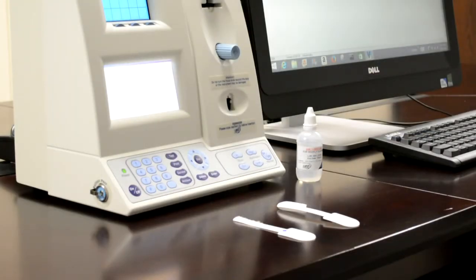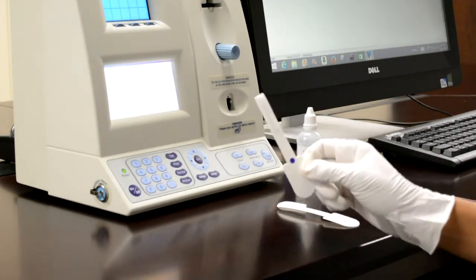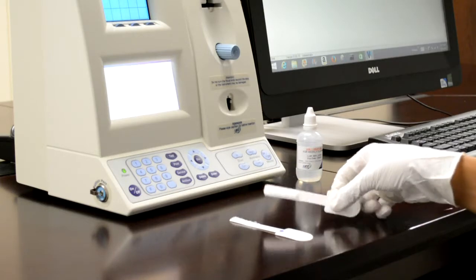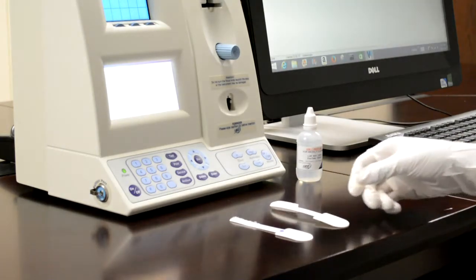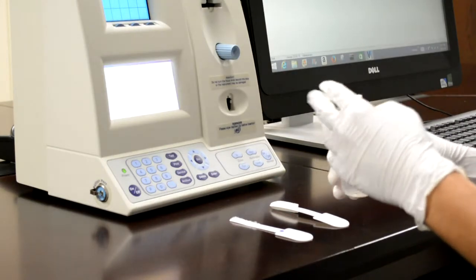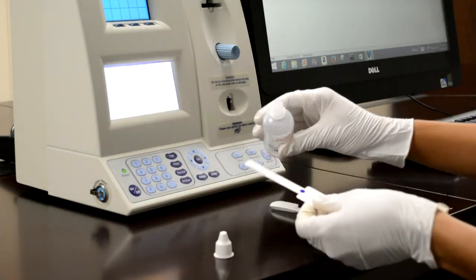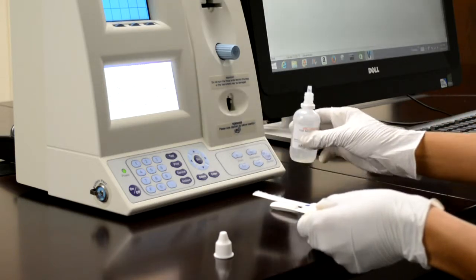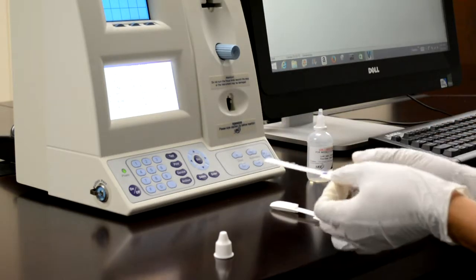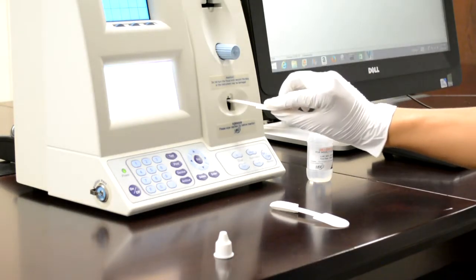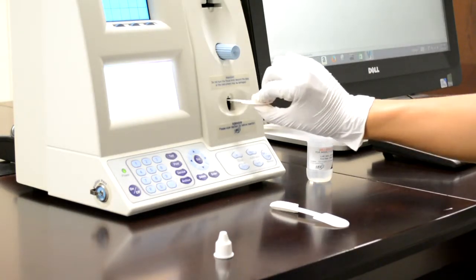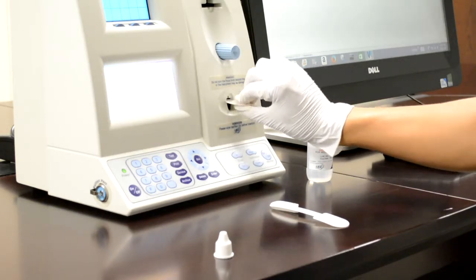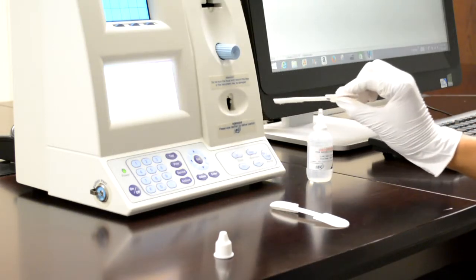Weekly maintenance of the SQAV includes utilizing the blue dot fibrous cleaning paddle and the spongy tipped paddle. To do so, take one drop of your cleaning solution and apply it to the tip of the blue dot paddle. You will then insert this paddle into the testing chamber face down. Give it 5-10 scrubs with a nice even motion and the step is complete.